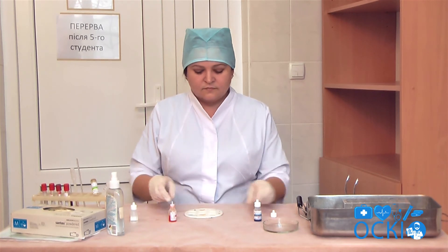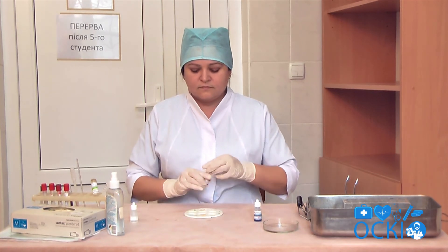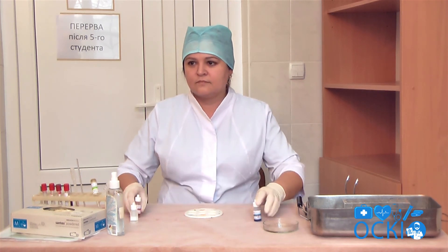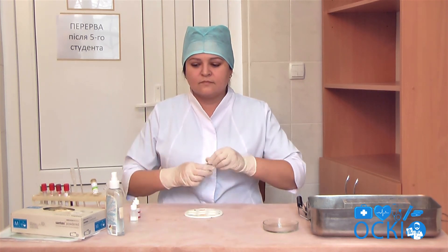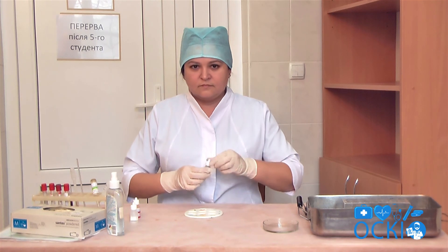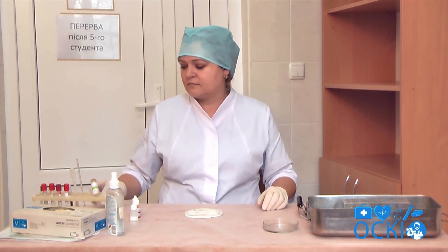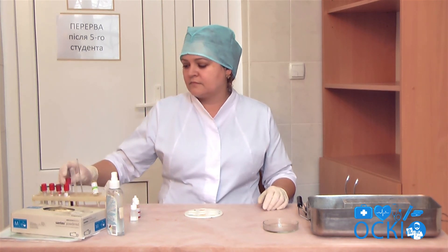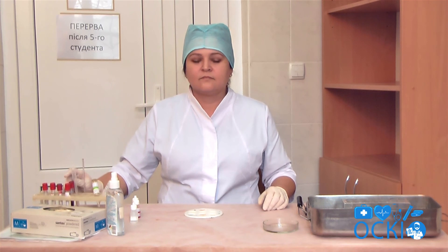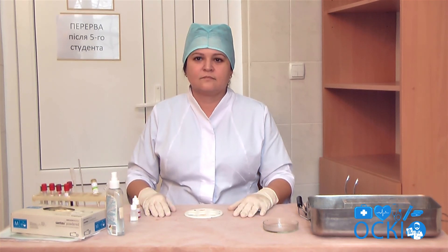Determine the blood group based on agglutination results: no agglutination indicates Group 1; agglutination with anti-A coliclone indicates Group 2; agglutination with anti-B coliclone indicates Group 3; agglutination with both coliclones indicates Group 4.